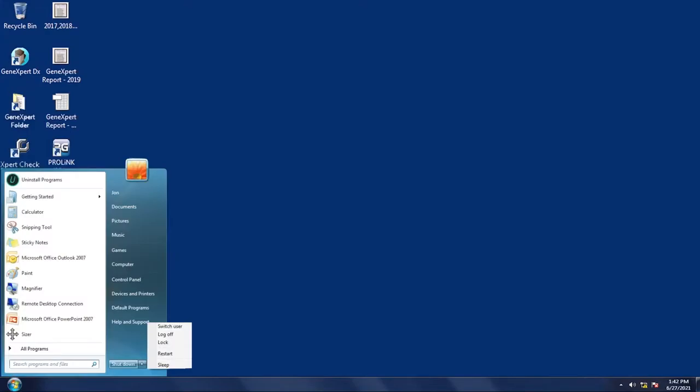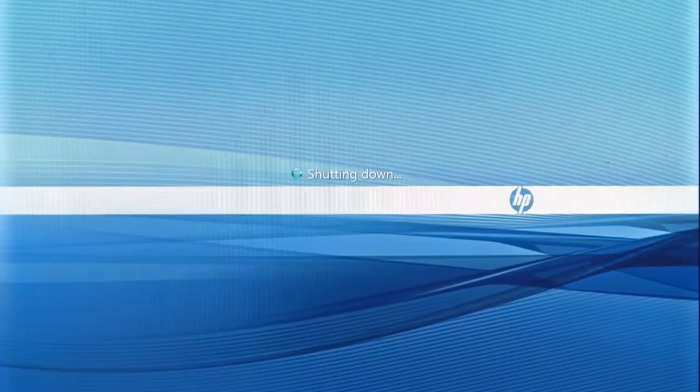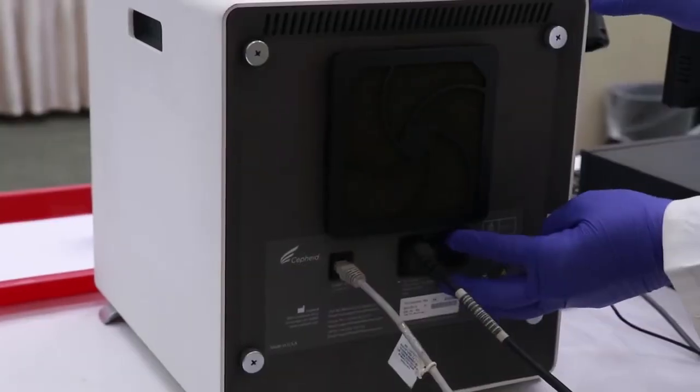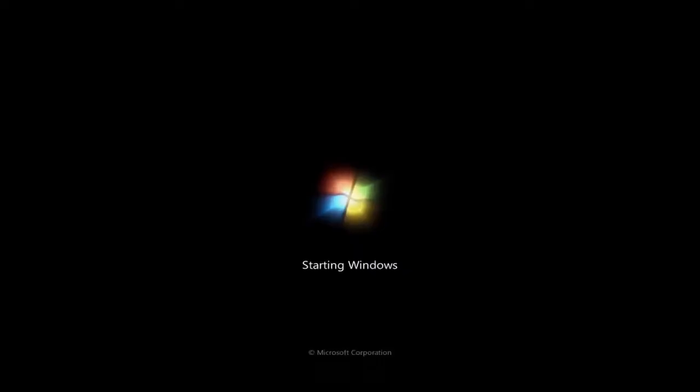Shut down the computer. Then switch off the GX machine. After a few moments, switch on the GX machine and then restart the computer.